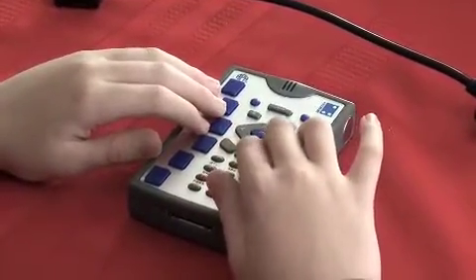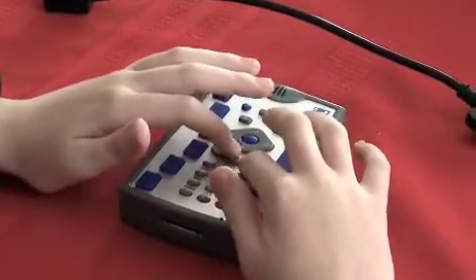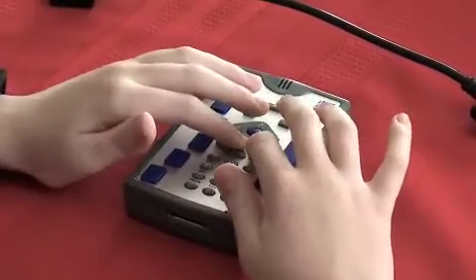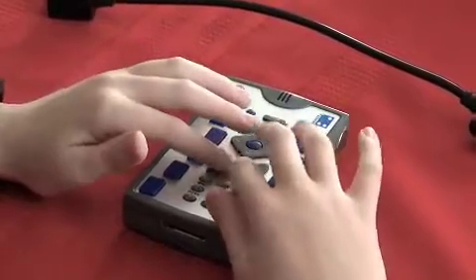To the right of that is the Cancel key. We've actually been using that Cancel key. This is the key that you can hold to turn your Braille Plus on and off. Press to get out of a program. And that's basically all it does.